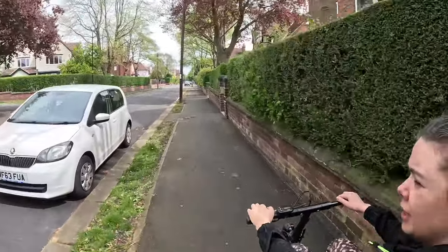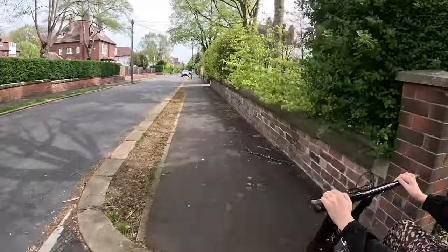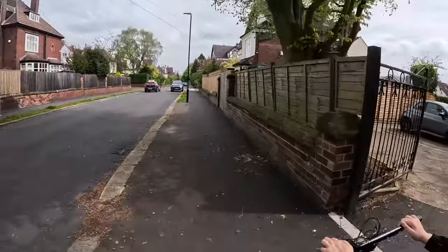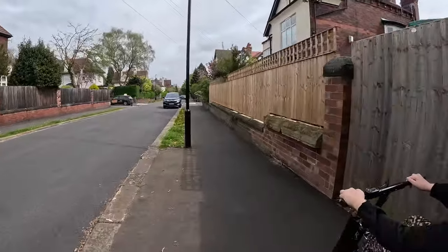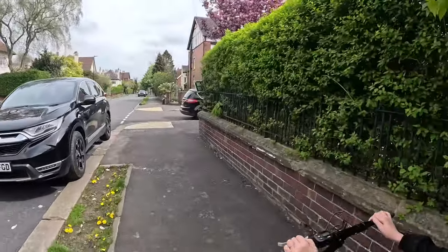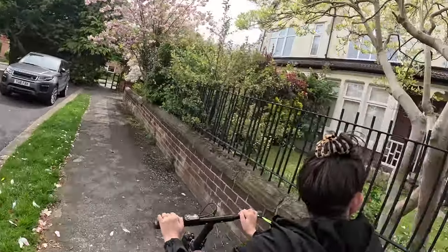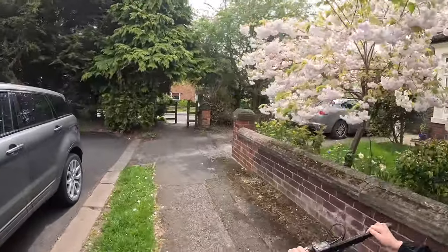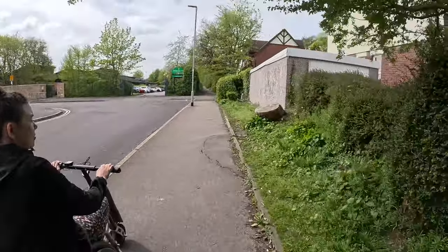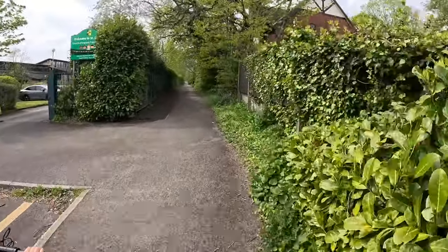I'd say one of the biggest drawbacks of the bike is how to transport it. It does fold up quite nicely, so if you're getting on a plane it can fit in the cabin locker, providing they'll let you — but that's a whole other story with airlines. It can do that a lot easier than other clip-on attachments, but the downside is that it's really difficult to get into a car independently, because it's an awkward shape and there's not that many places to hang on to. It is possible, but I'm not a fan of doing it.